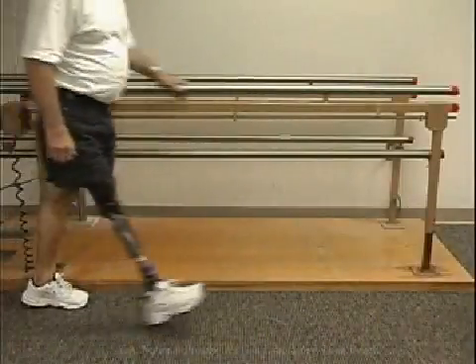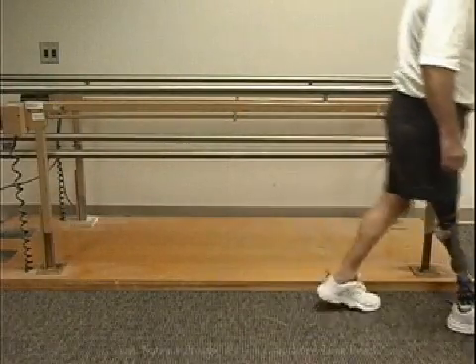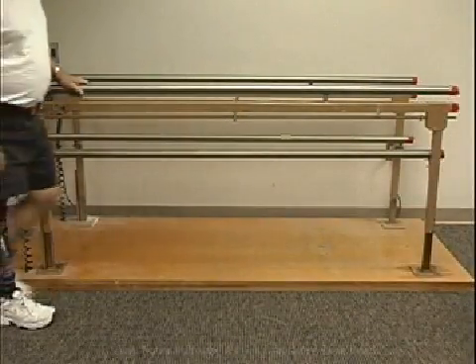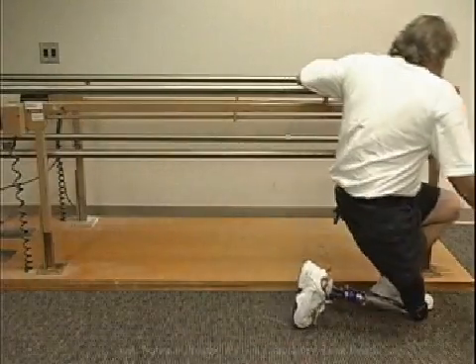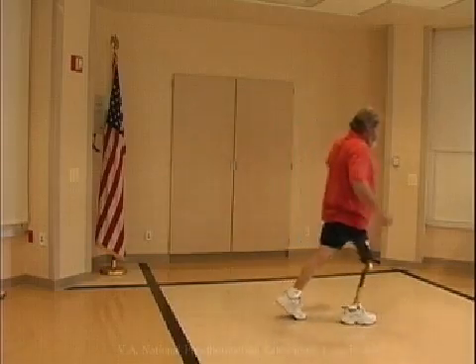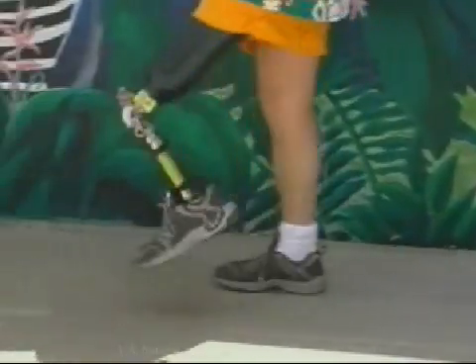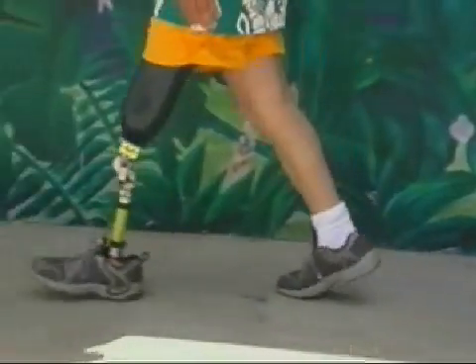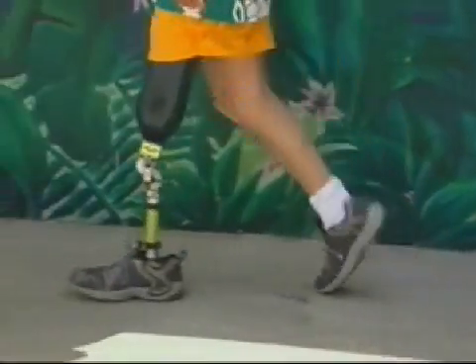Knee instability can also occur in early stance phase when excessive resistance to plantar flexion is caused by a heel durometer or plantar flexion bumper that is too firm. If an articulated prosthetic foot has no resistance to dorsiflexion or is aligned in excessive dorsiflexion, the prosthetic tibia may continue to advance over the foot without restraint, even to the point of knee collapse.